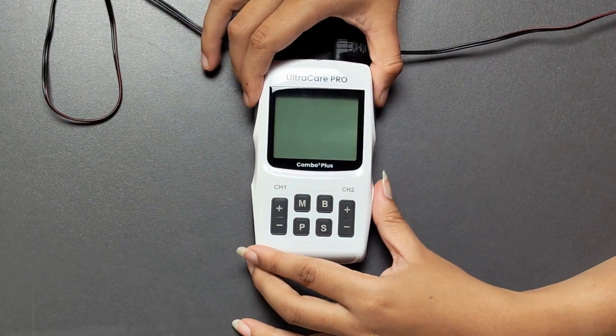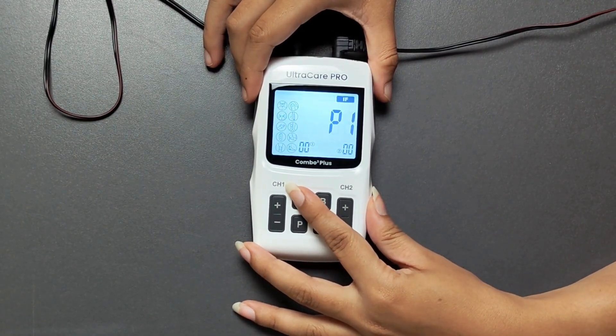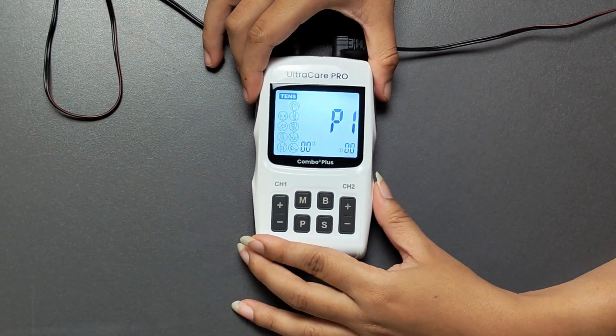Long press the power button to turn on the device. Next, press the M button to select your treatment mode from IFT, TENS, EMS, or Russian current therapy.